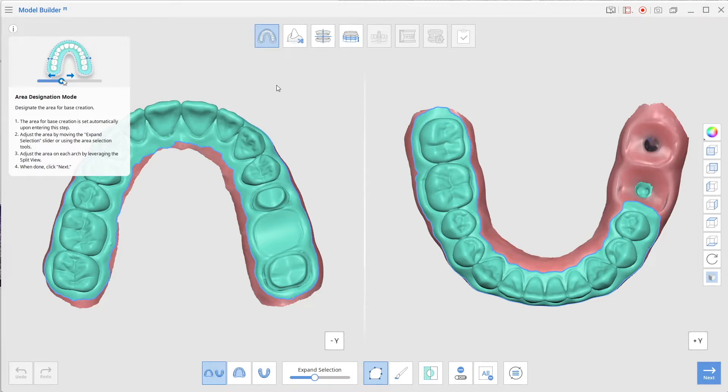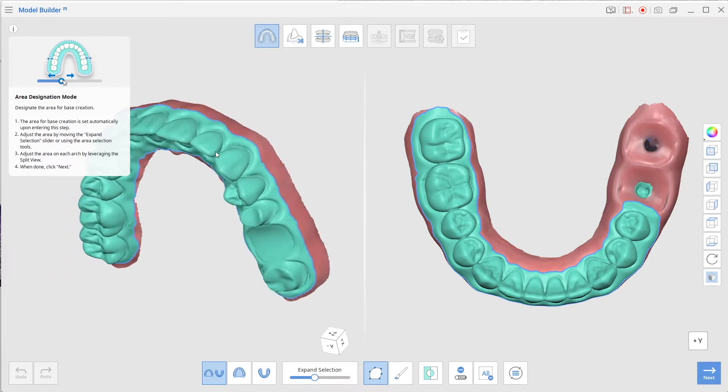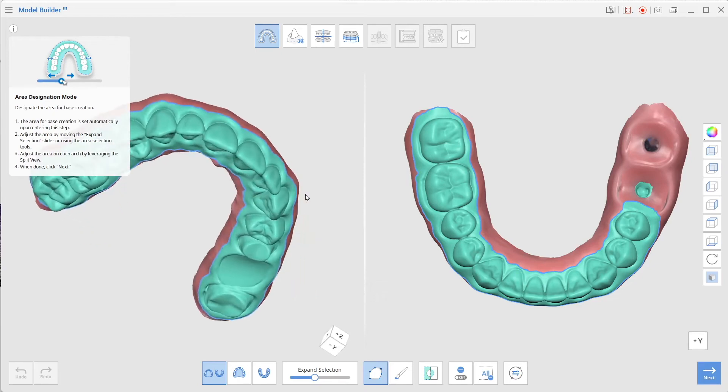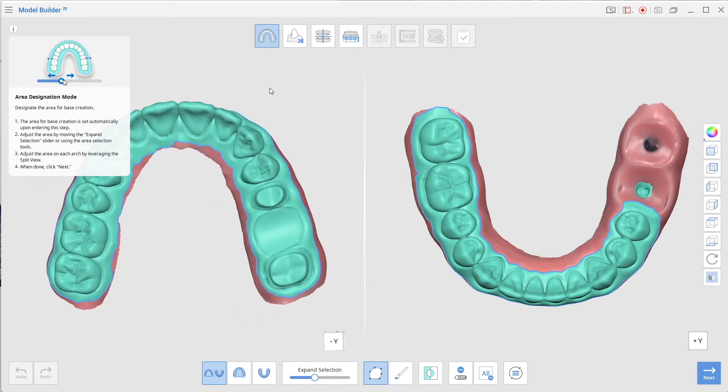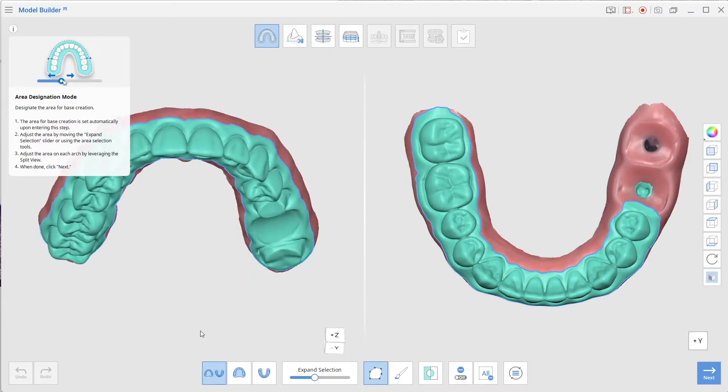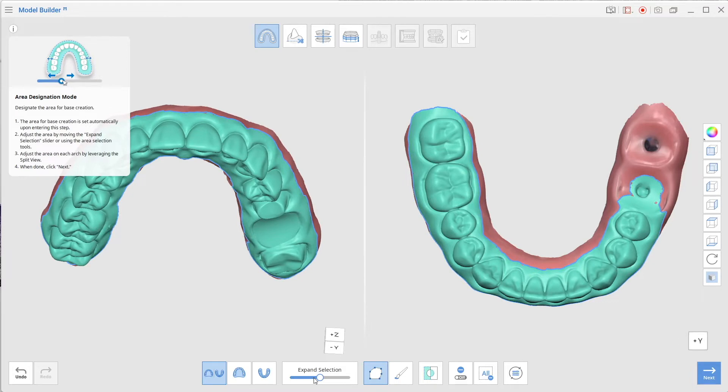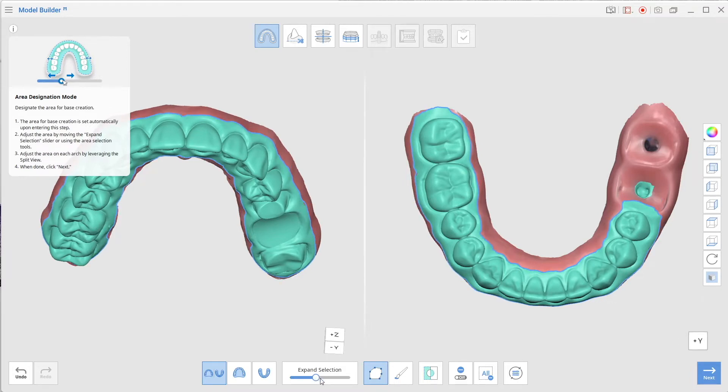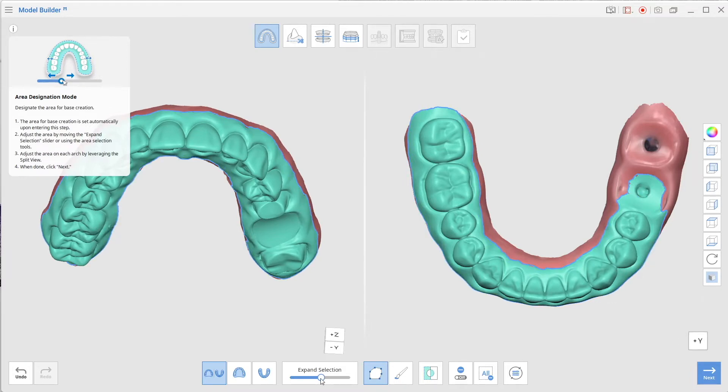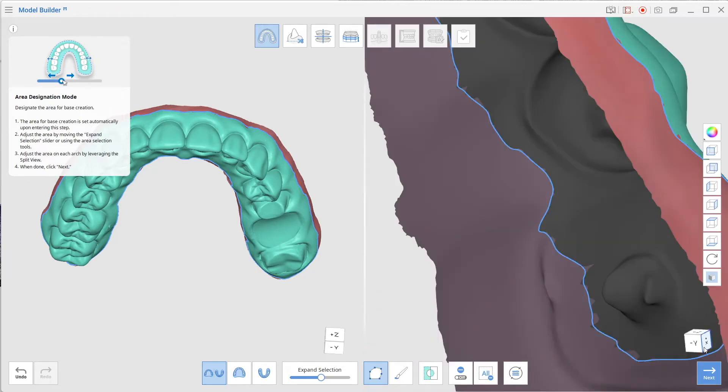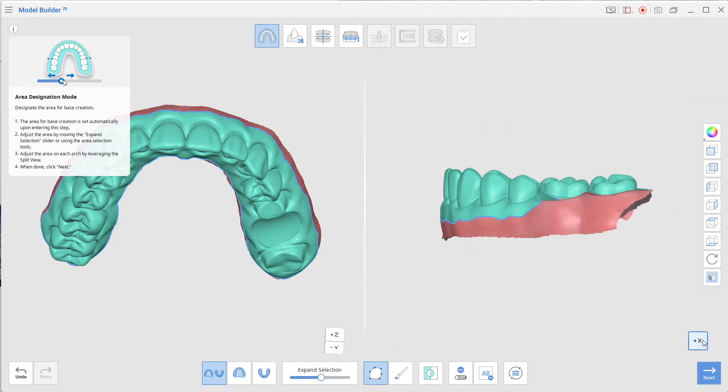When you click this first stage it's going to automatically select for you, but you can see it's not selecting too much of the gingival simply because it wants to minimize the amount of overlap. We can expand that selection by dragging over and increase a little bit more of the gingival coverage. We don't want to increase that too much because it's going to increase the height of the model which would then increase the print duration and also take more resin.